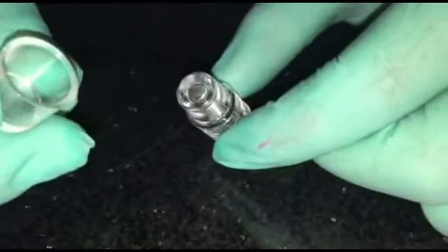Hi everyone. Small demonstration to help you understand how much luting cement you should be using at the time of cementing a crown. A small contraption here - this is the prosthetic crown and this is the abutment tooth.